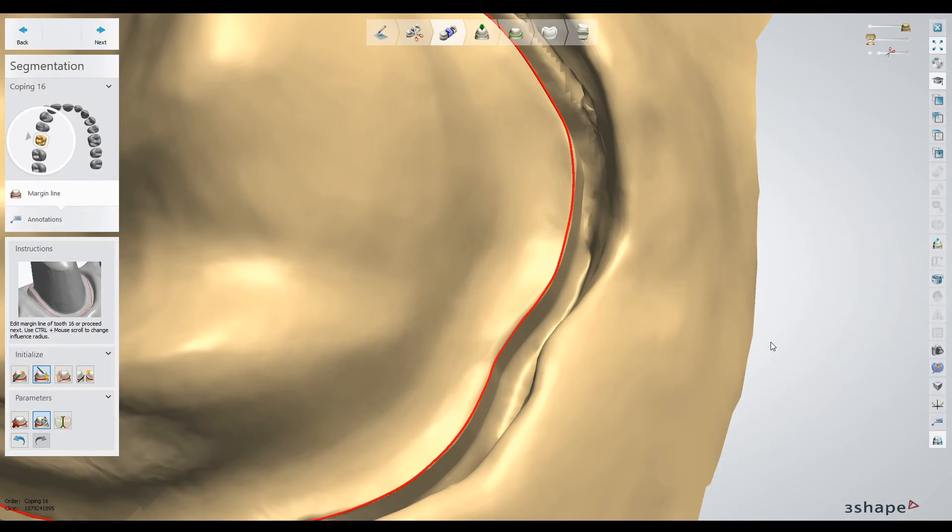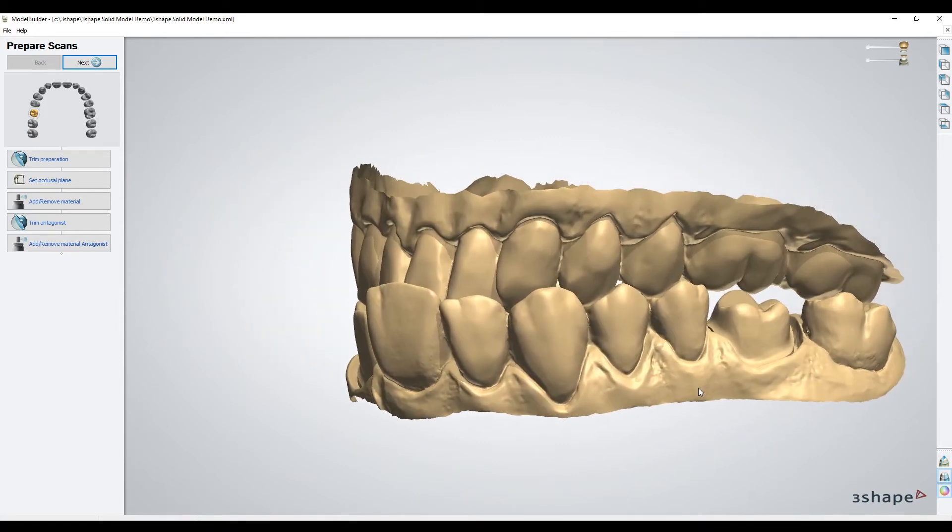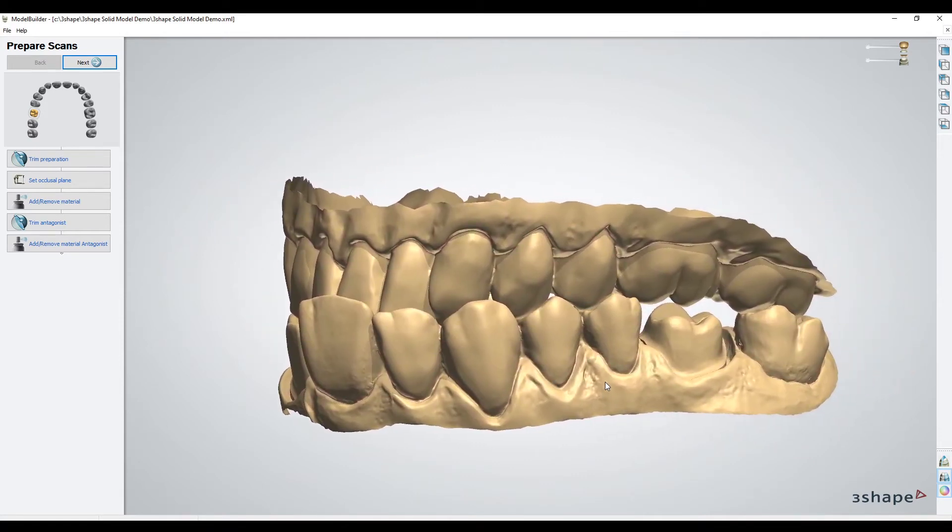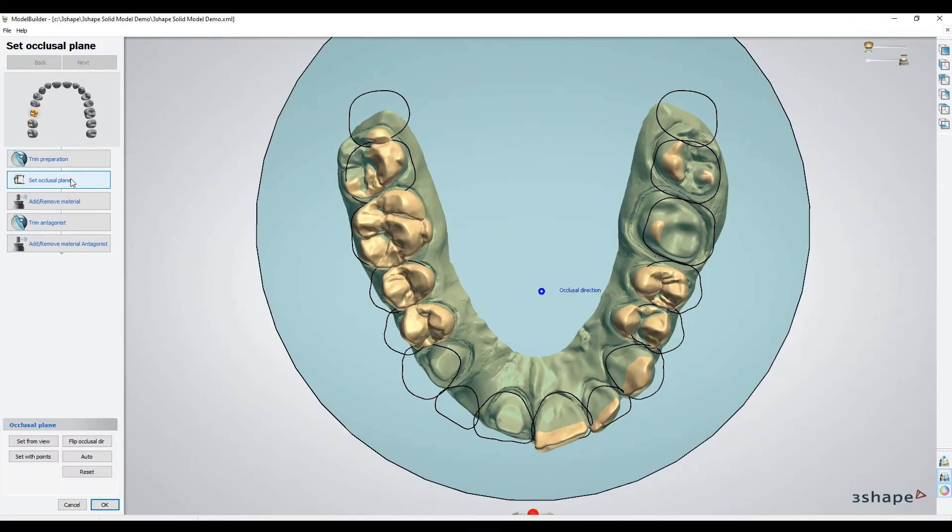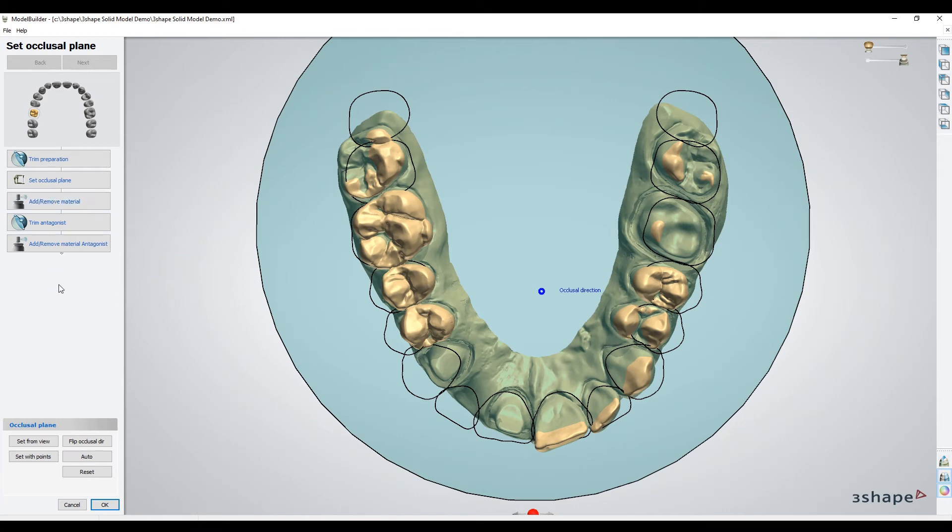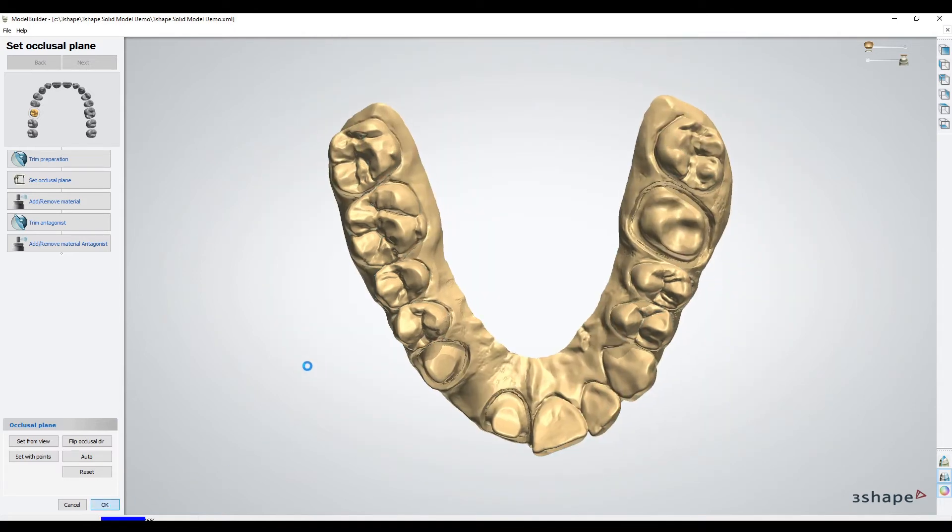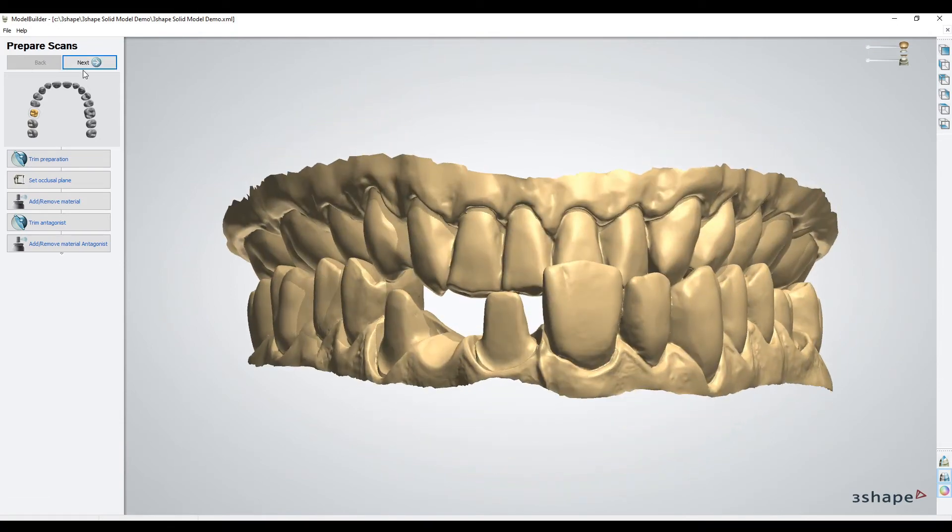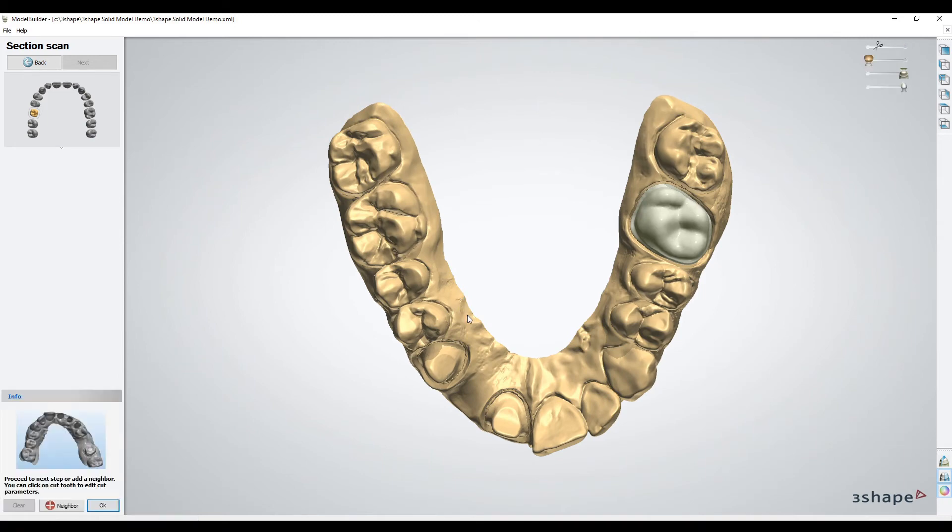Now we are in the model building step to create our solid model. The first stage allows you to again trim the scan if you wanted to do some more trimming after design, and also setting the occlusal plane. This comes in from the design stage, so it's maybe worth just clicking on it and checking to make sure it looks okay. You can also remove material, but if you did all this work in the design phase, there's really not much to do in this first step. Just confirm that occlusal plane because it's really critical on how it ditches and positions the base of the model. It's actually how the base is generated.